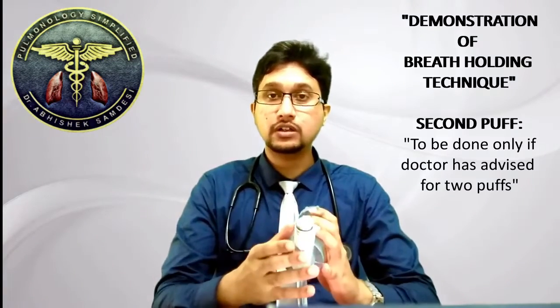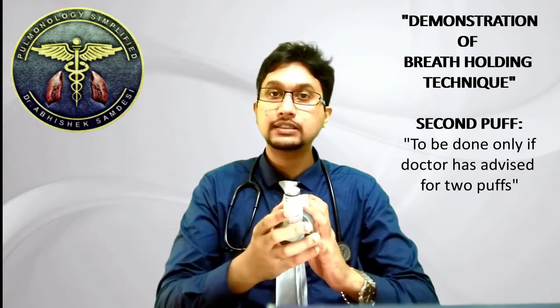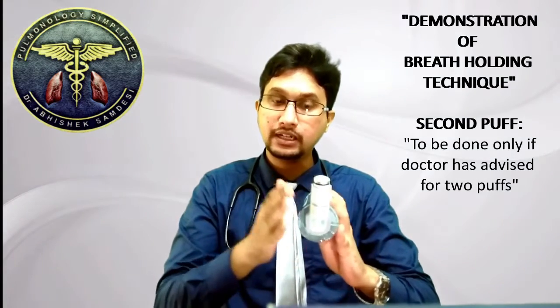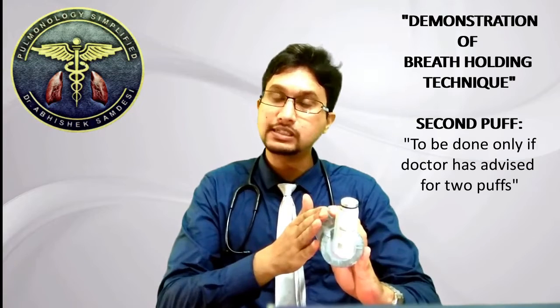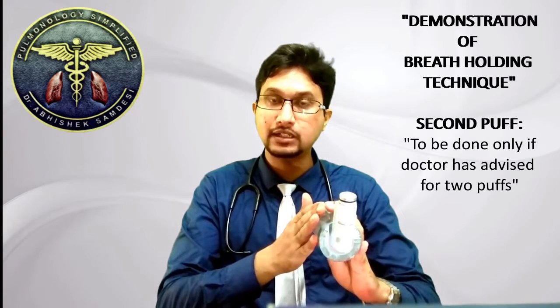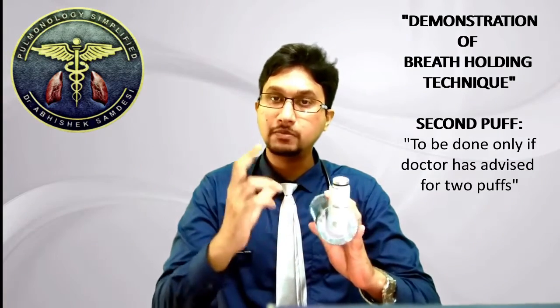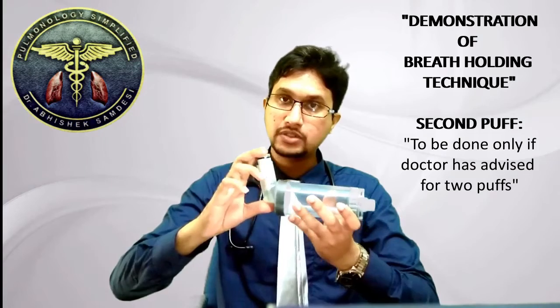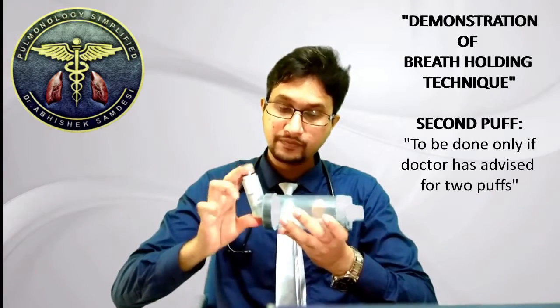If your doctor advises two puffs, the second puff will be taken after three cycles of this are completed. For the second puff, press the inhaler once again.